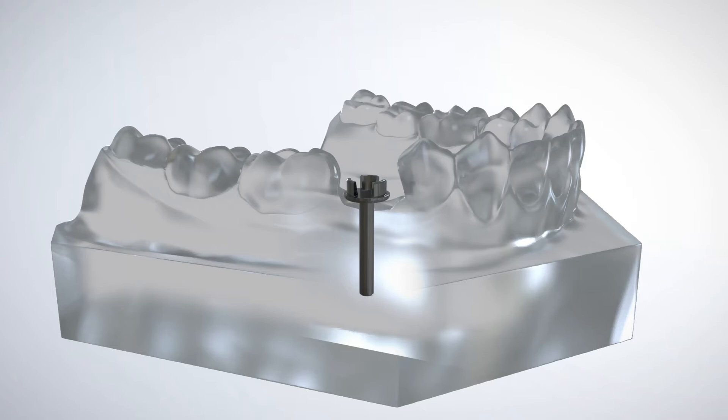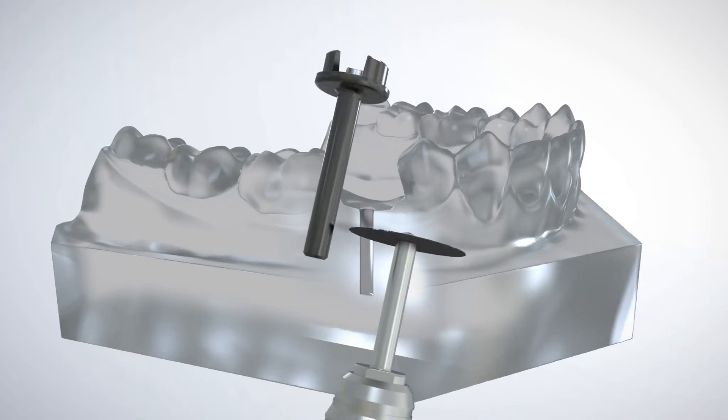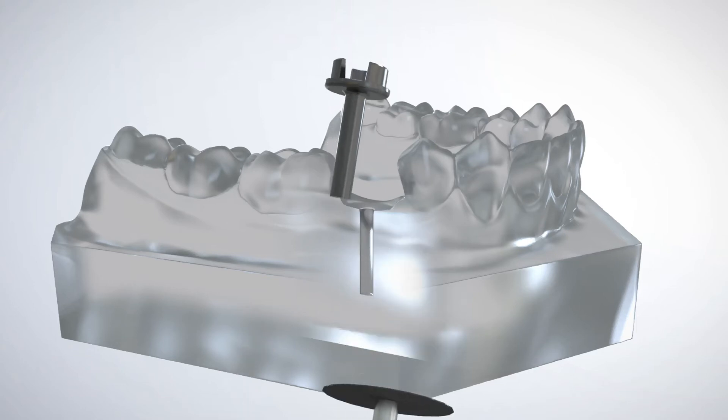The locator pin shaft is modified so that the platform rests on the tissue for optimal surgical access or can be adjusted for any specific height requirement.